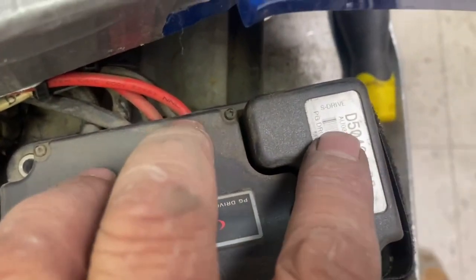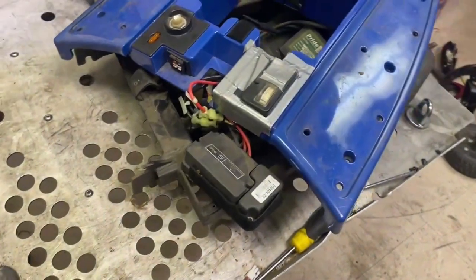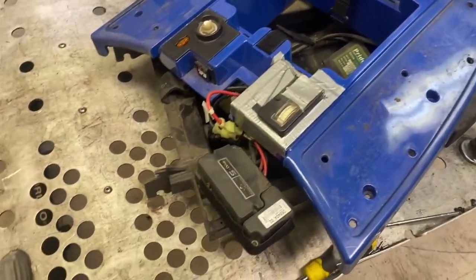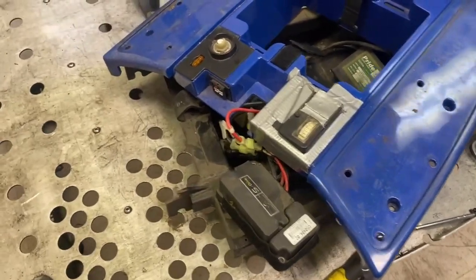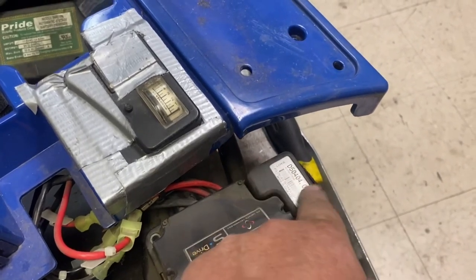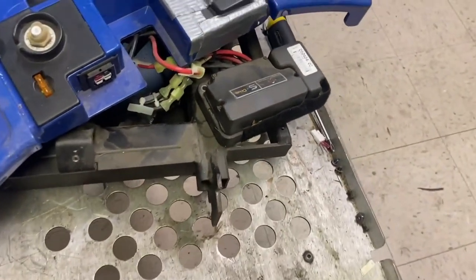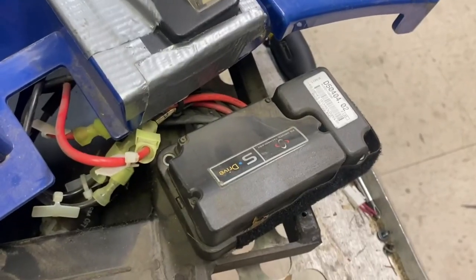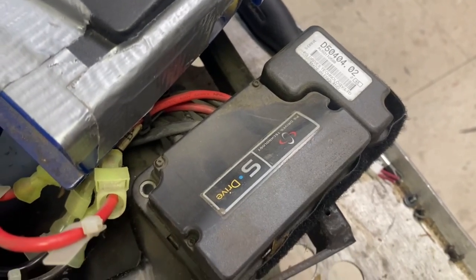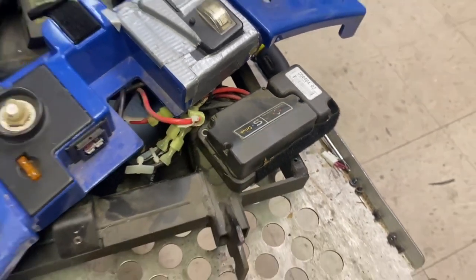No wonder it failed. Anyway, D50404 version 2 — so that would be the controller you're looking for. Can't be anything else. You're getting power to the top console giving you a nine-flash code, so that's the controller. My first thoughts are that the clusters inside have blown and caused it to give an error. Unless you can find a replacement controller with those same model numbers and program numbers, I don't think you'd be able to find anything.